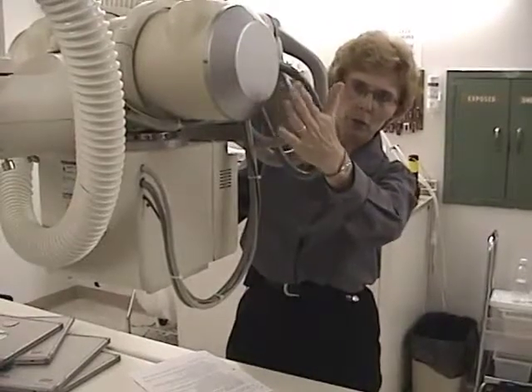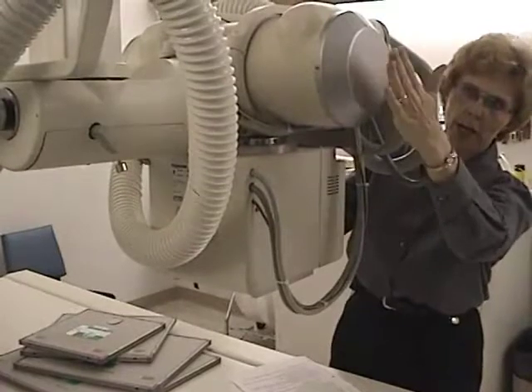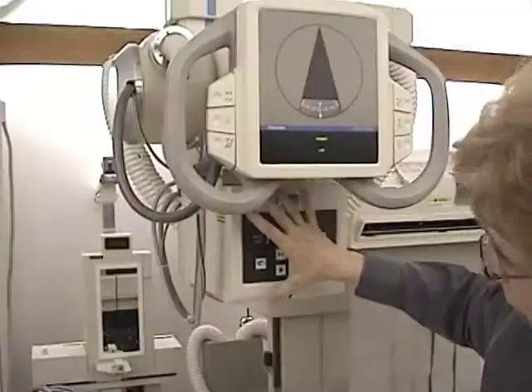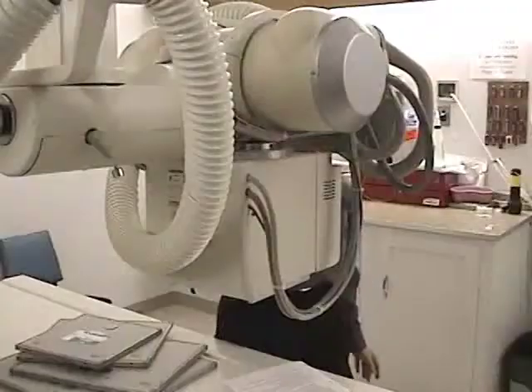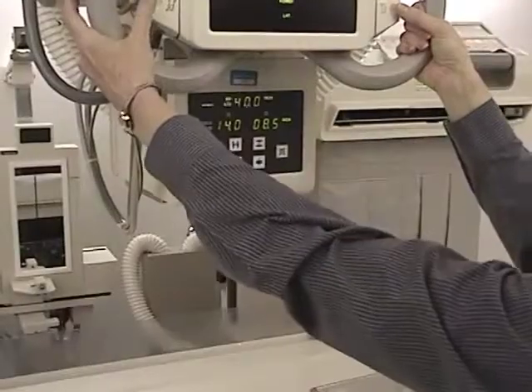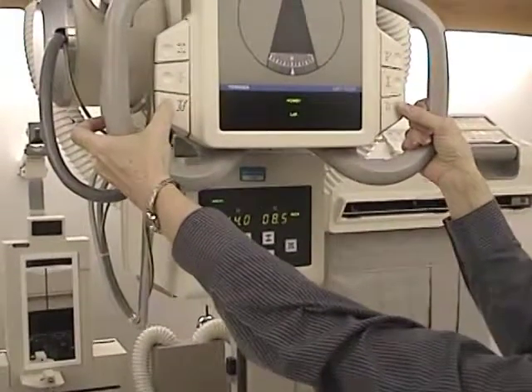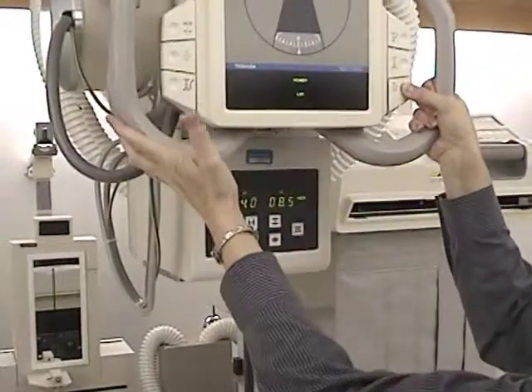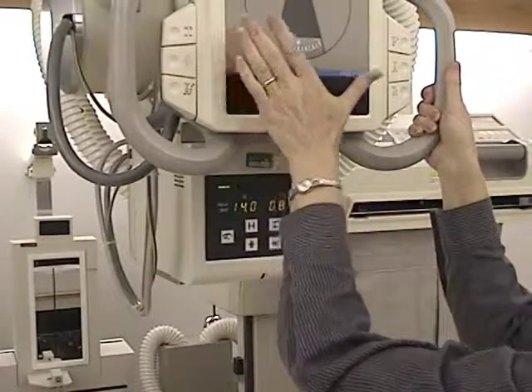This is the x-ray tube. You know, the x-ray tube is inside this part of the contraption. This is actually the part that houses the x-ray tube. This here is the collimator. The beam restrictor lives here, and you need to know how to adjust the size of the beam using the collimator. Every tube has locks that have to be unlocked in order to manipulate the equipment, and in many cases that means depressing a button in order to move the tube up and down or sideways or to tilt it or whatever it is. Become familiar with your own equipment.